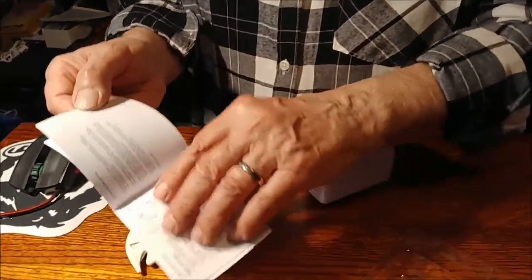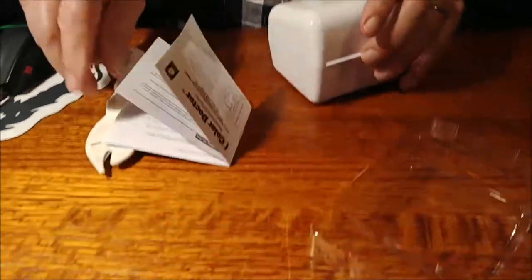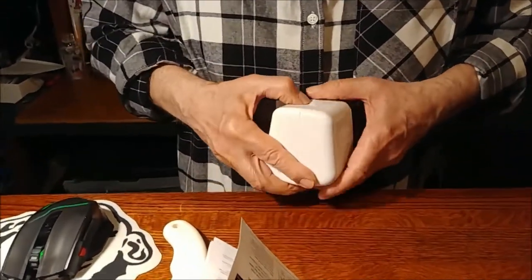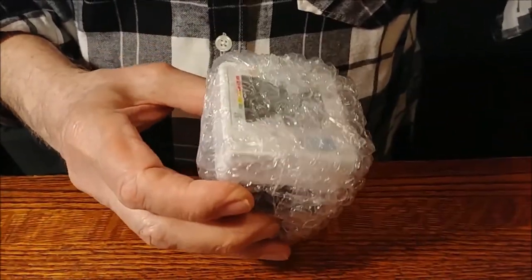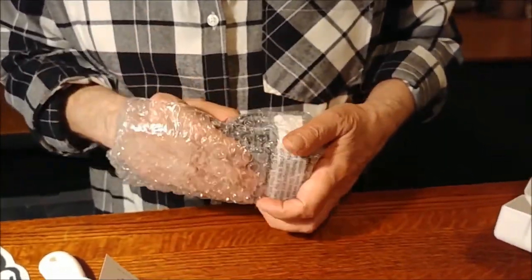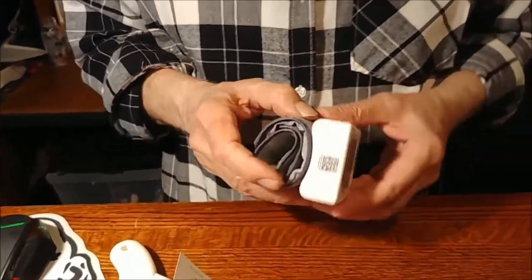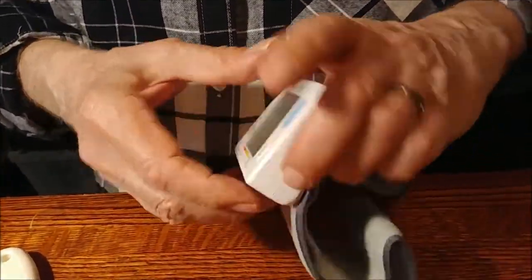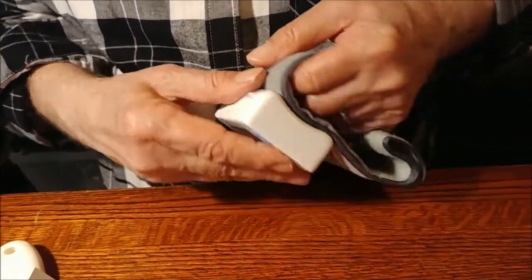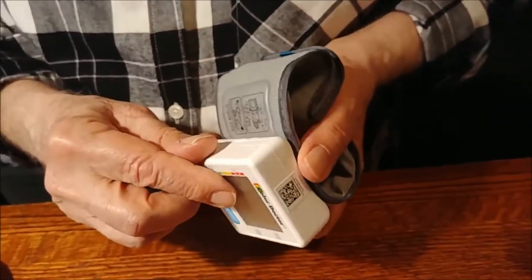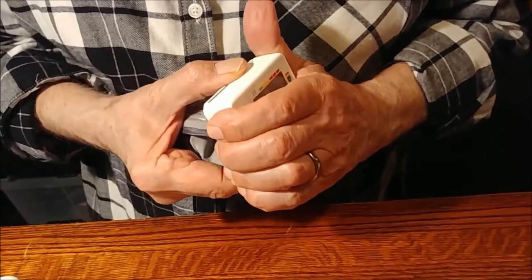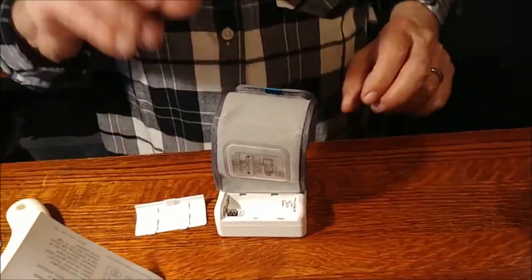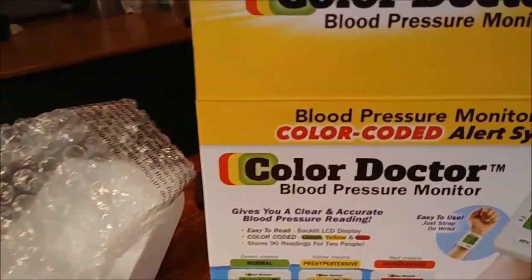I can feel my blood pressure going. My blood pressure, I am already into the yellow and soon to go into red. No, actually, this is not bad. Oh, this is really the stuff doctors use. And we open it by, this looks like a little compartment. It does not come with batteries. And it needs two triple A's. You keep looking at the box and I'll be back in a moment.